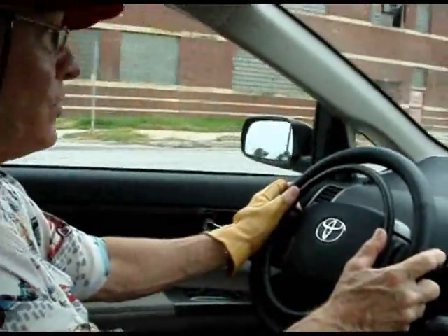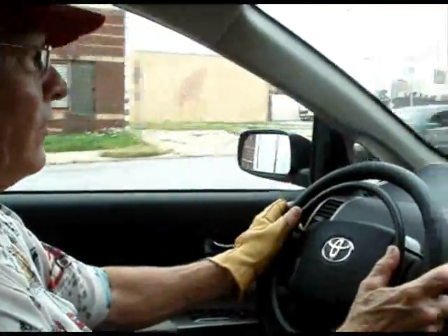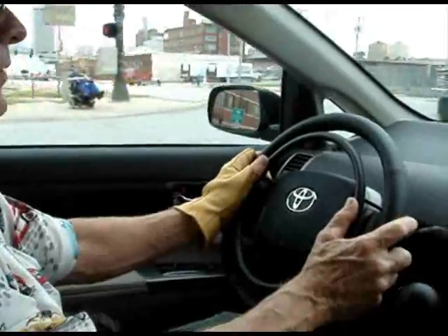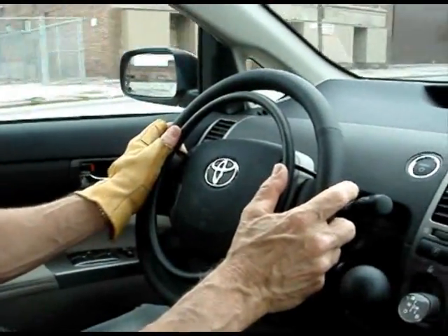I like that very much. You don't have to brake to decelerate the vehicle. You simply release a little bit of pressure on the accelerator rim, and the car slows down very comfortably.